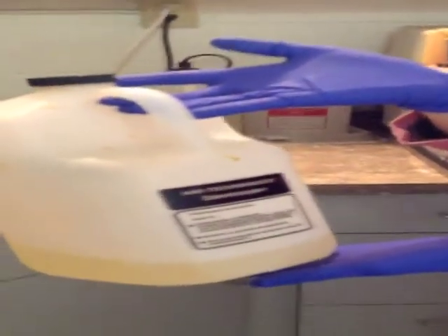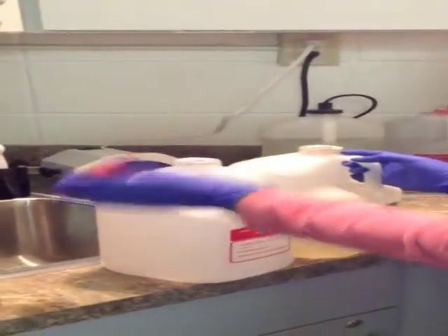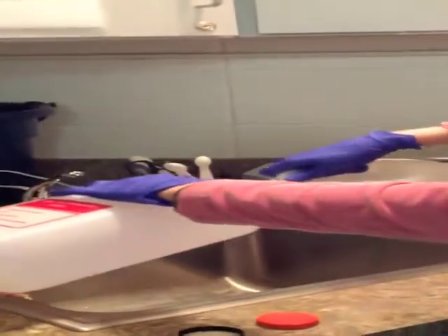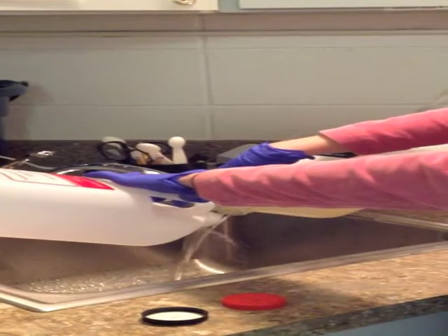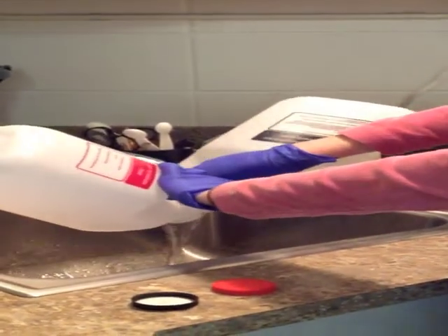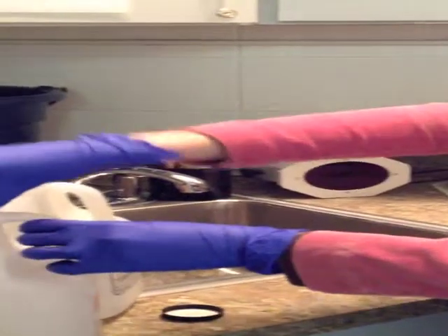If the used bottles start to have a brown look about them, or the solution starts to look slightly cloudy, it is okay to discard this solution. This is old solution and your films may not process properly. In that case, what you need to do is discard the solution down the sink, and what you will do is actually pour the solutions. This is the only time you can mix the solutions, but we will pour the solutions at the same time into the drain. By pouring them together, we are actually neutralizing the acids, and they are safe to go down into the city waste disposal systems.